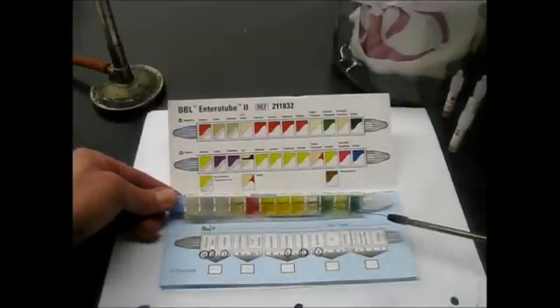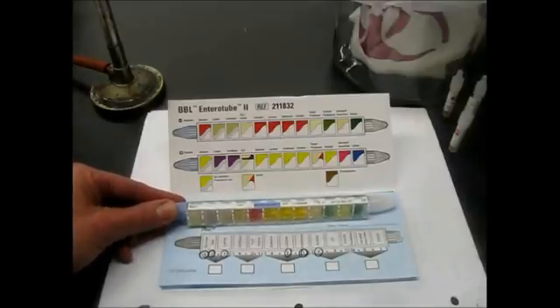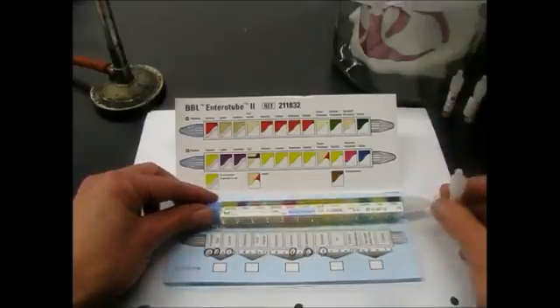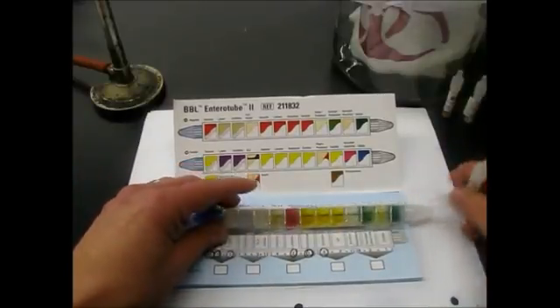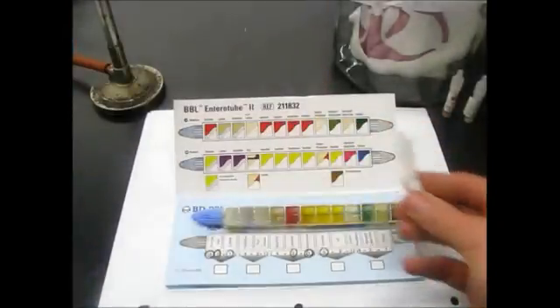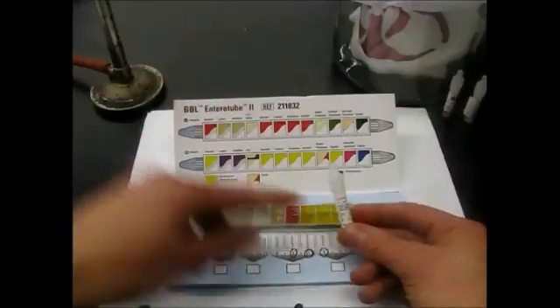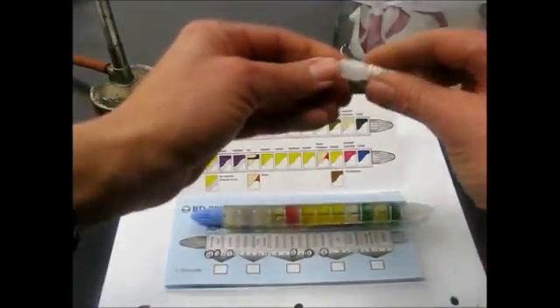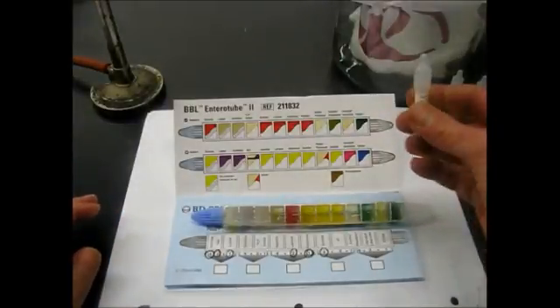And the VP in there. Okay, so there's that. We're ready to add the reagent. The first reagent we're going to add to the indole compartment right there. It is called Kovacs reagent, but I believe you have a little vial that just says indole on it for the indole test. You take this vial and just squeeze it, and it will crush. There's an inner vial inside here.